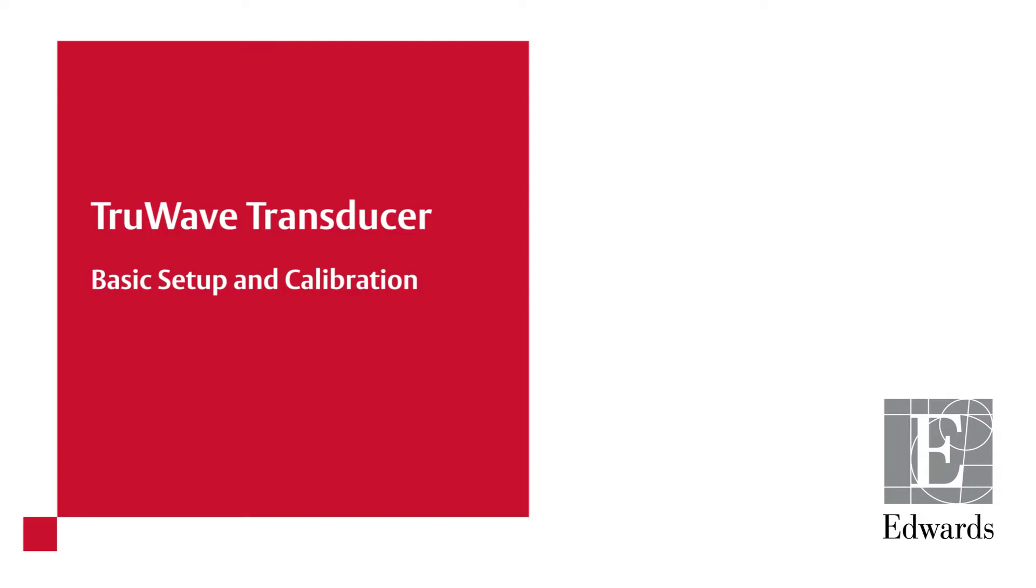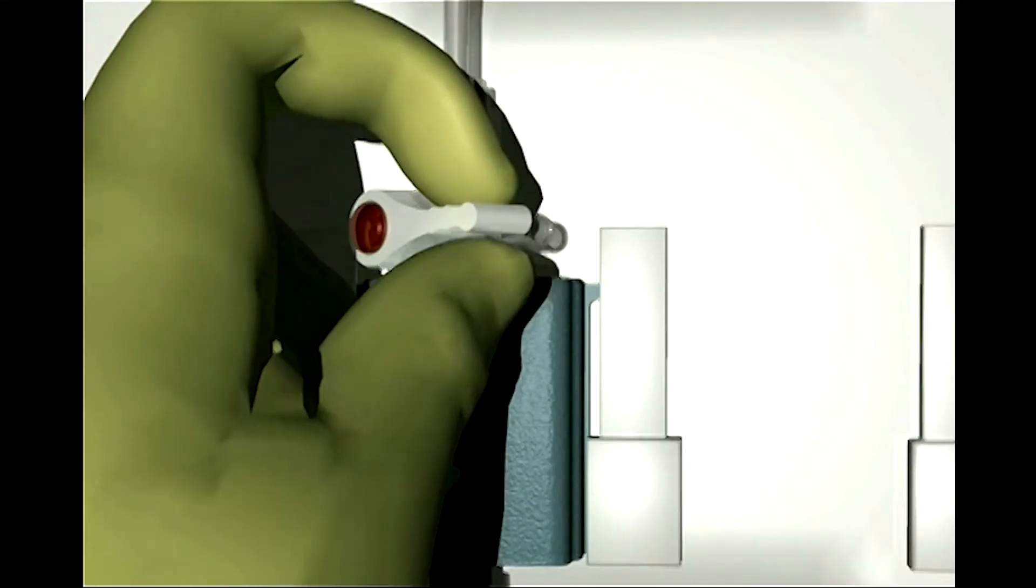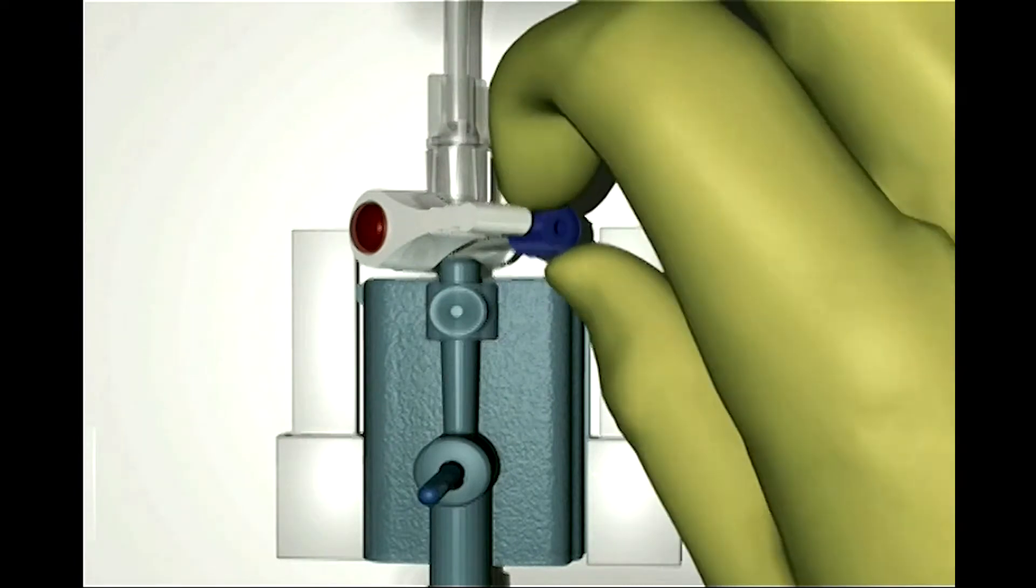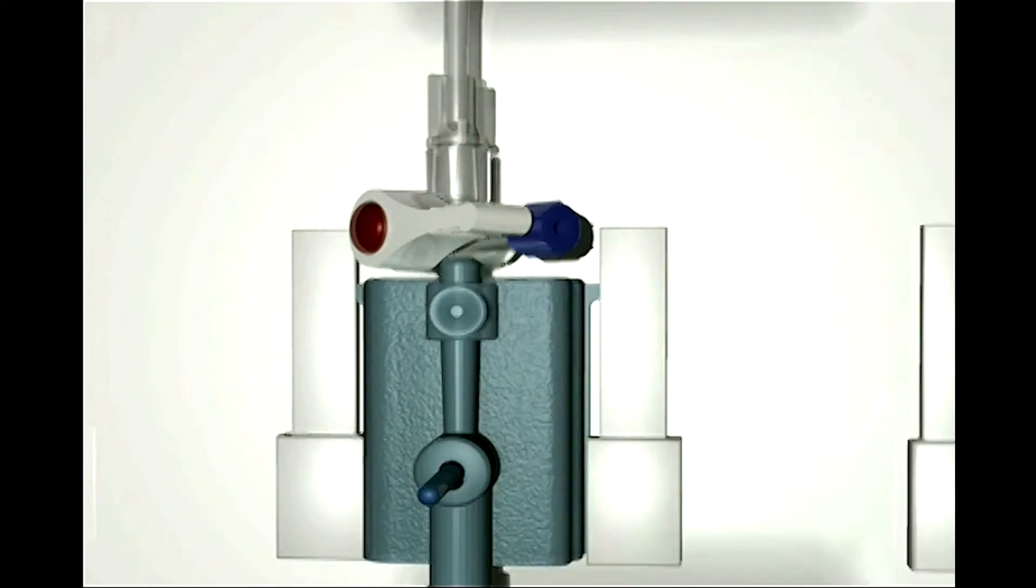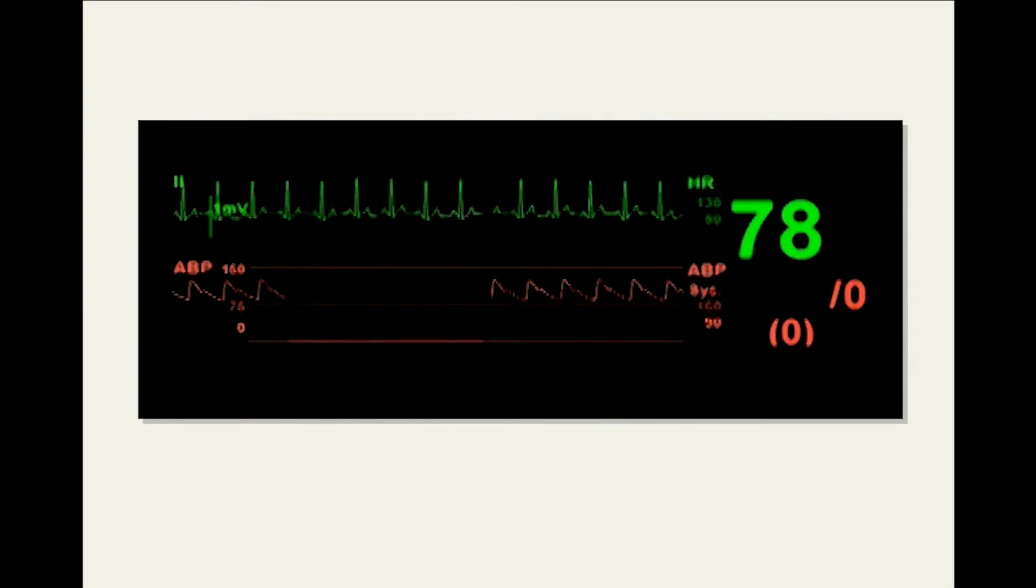Intravascular Pressure Monitoring Setup with the TruWave Transducer. Bedside measurement of intravascular pressures is a basic tool in the care of the critically ill patient. The following animation demonstrates best practice in the setup of the TruWave Disposable Pressure Transducer.